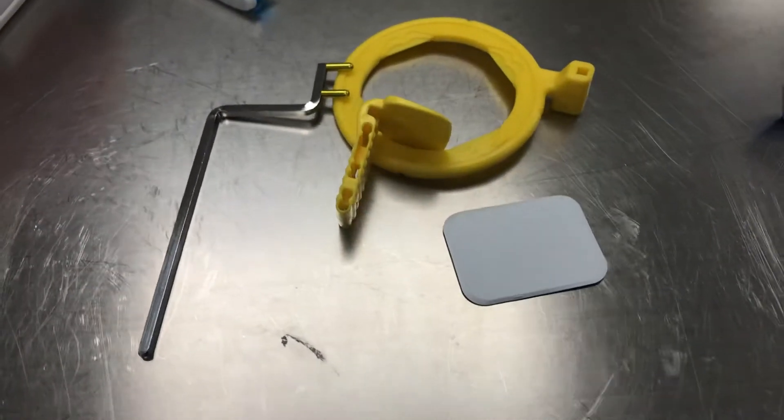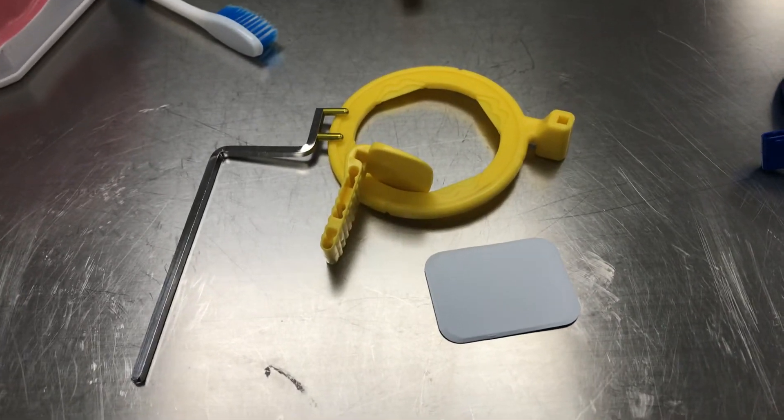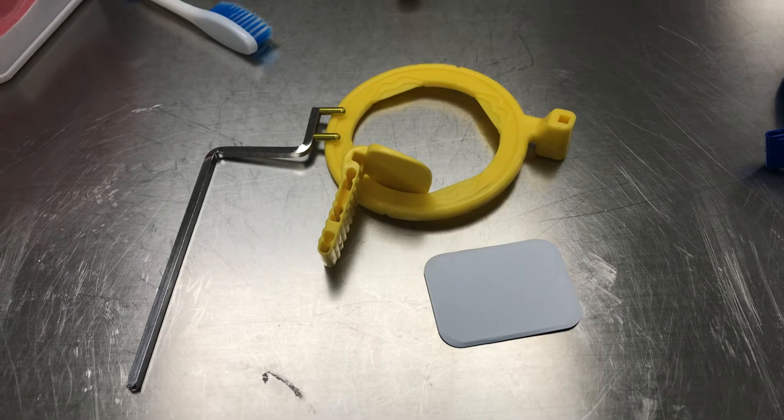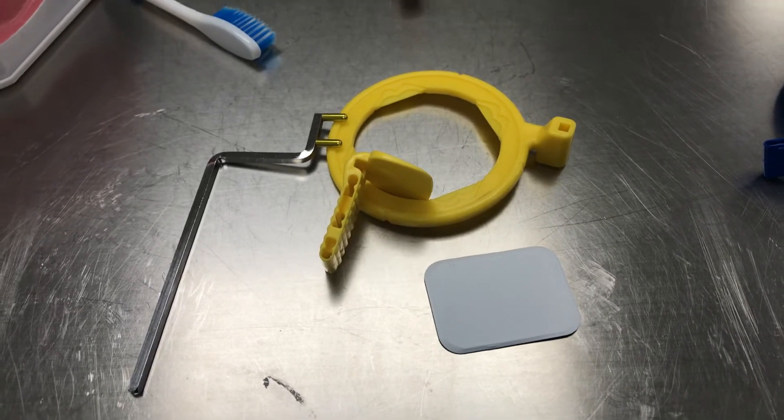Then we have the yellow, which is for PAs, or they're called periapical x-rays. This is to get all the posterior teeth, upper and lower.